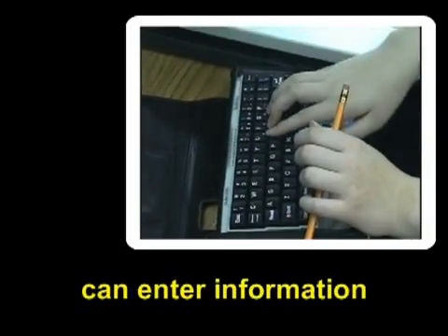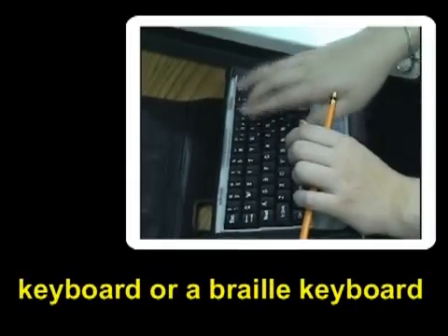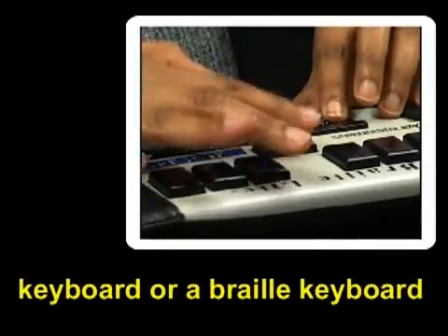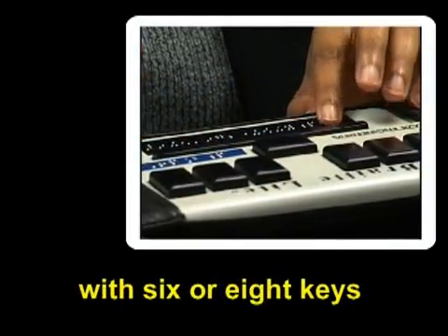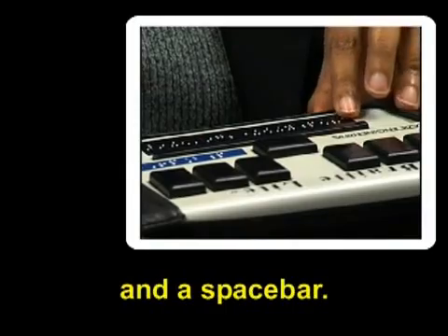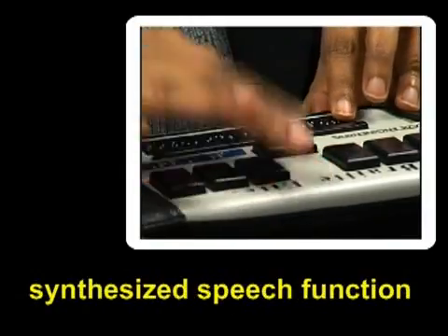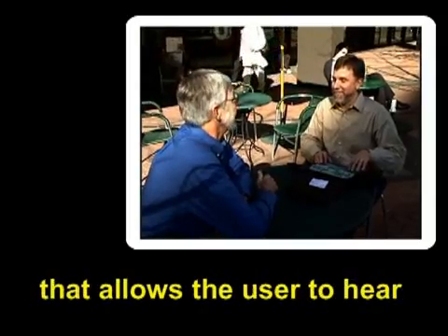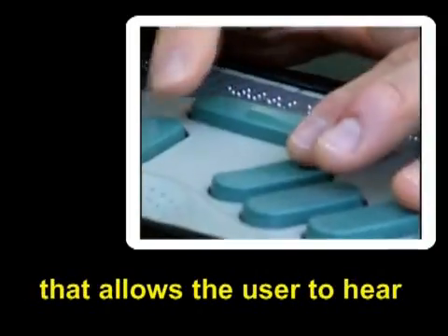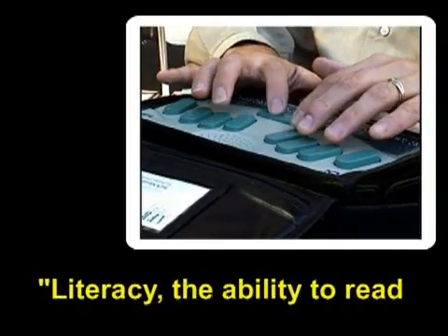The user can enter information through a standard QWERTY keyboard or a braille keyboard with six or eight keys and a space bar. Accessible PDAs have a synthesized speech function that allows the user to hear spoken information.